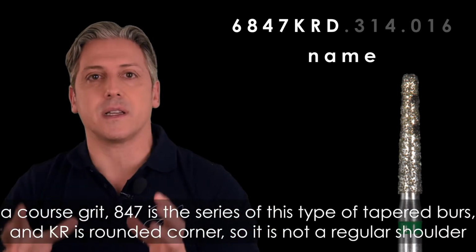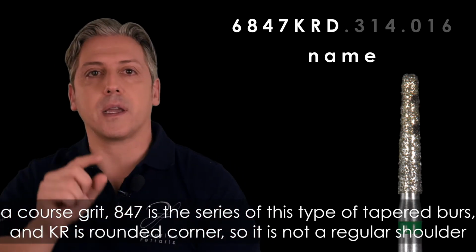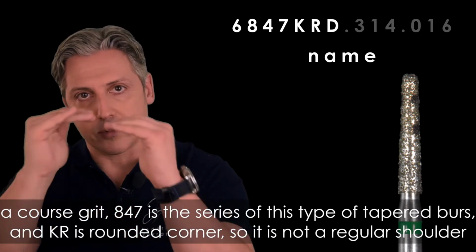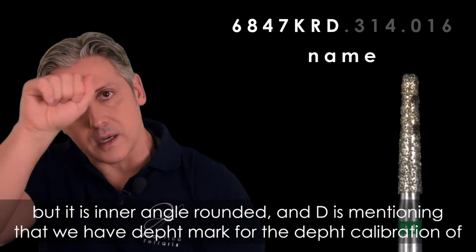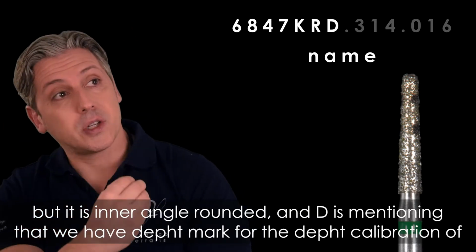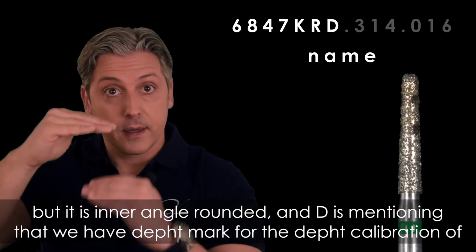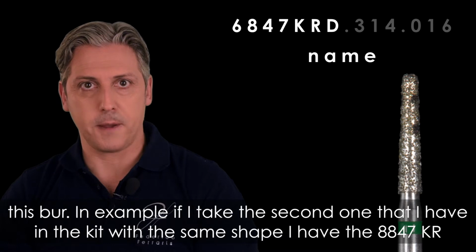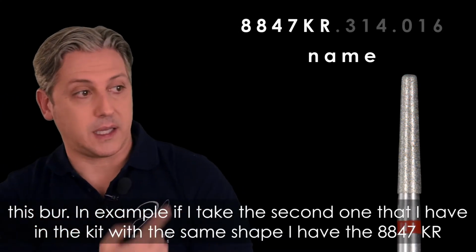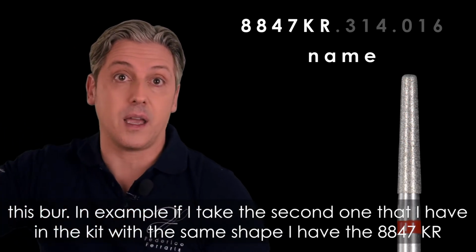847 is the series of this type of tapered burrs, and KR is a rounded corner, so it's not a regular shoulder, but a rounded inner angle, and D is mentioning that we have a depth mark for the depth calibration of this burr, okay? For example, if I take the second one that I have in the kit with the same shape, I have the 8847KR.